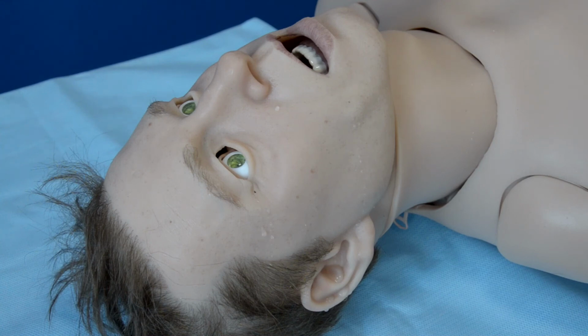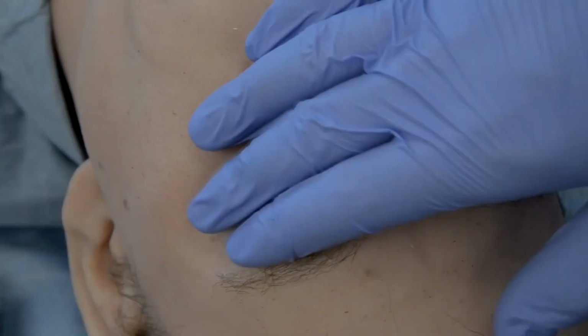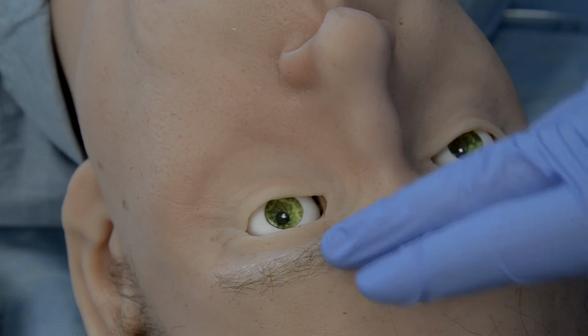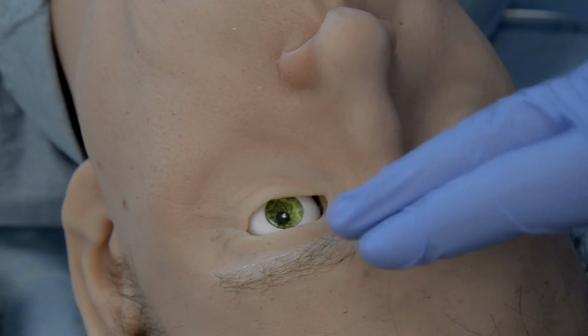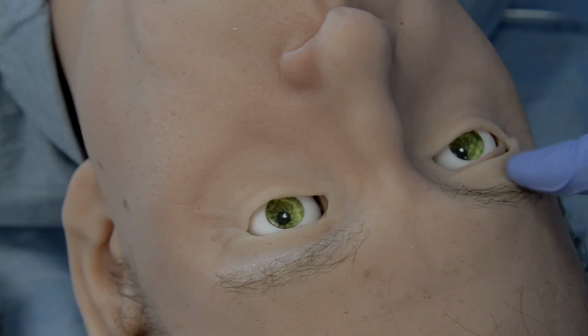Here on Leo we can see tears, secretion from the ears, mouth secretion, secretion from the nose, sweating on the forehead, and urination. Light reflex in the eyes, and also eyes are completely programmable and interactive. So for example, you can have them open, closed, half open. You can configure the blinking speed and for example introduce parameters like anisocoria or different size of pupils.